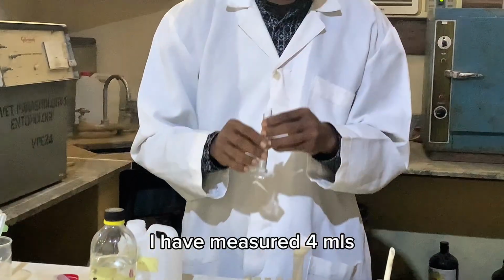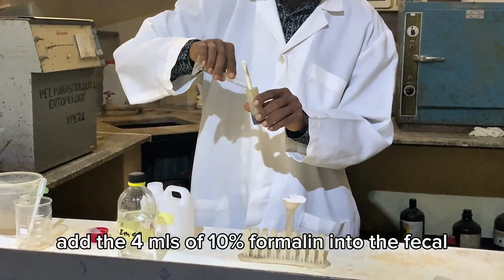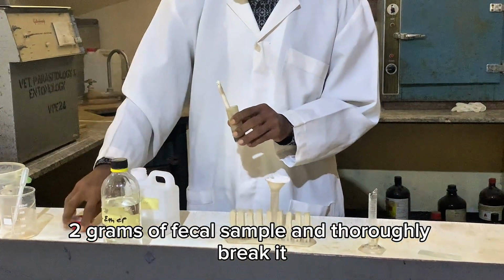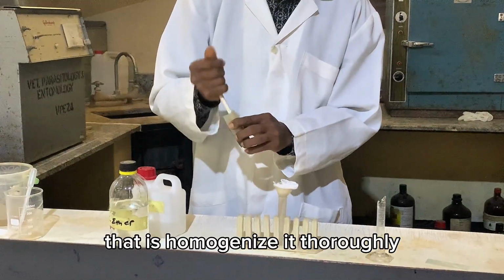I've measured 4 mils. Add the 4 mils of 10% formalin into the 2 grams of fecal sample and thoroughly break it, that is, homogenize it thoroughly.